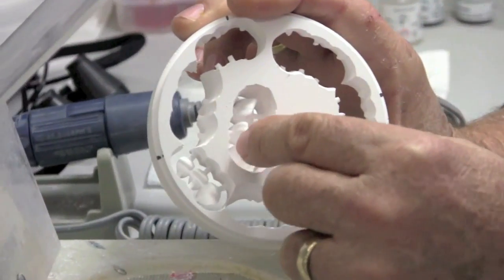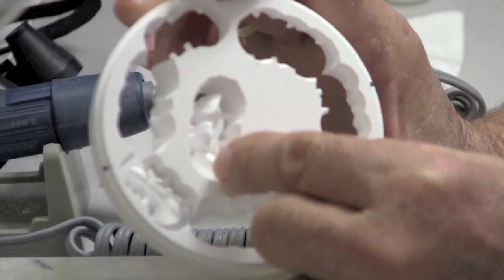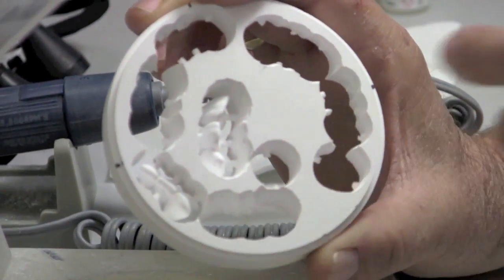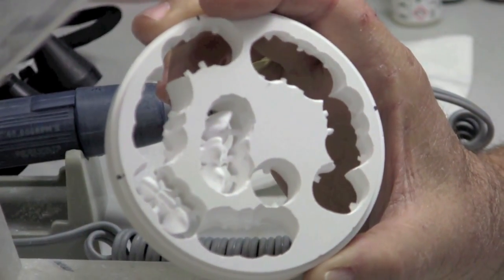That's not how this was done. These were only partially removed, but there's no harm. And as a matter of fact, I think it's better to go ahead and have the mill remove the sprues on the facial. You can leave them partially cut on the lingual.